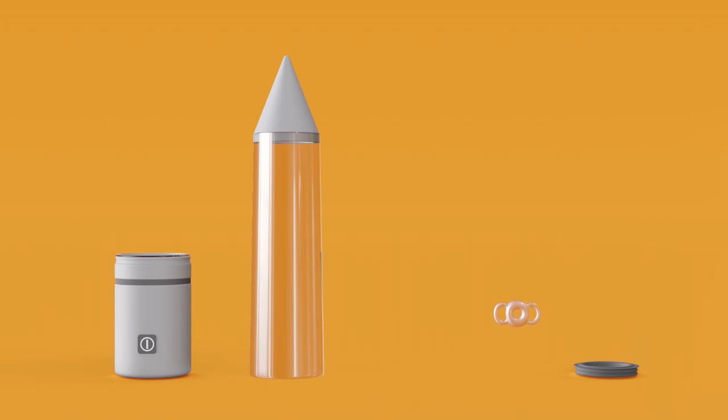Select the largest tension ring. Generously lubricate the loading cone and use both hands to slide the ring down the cone until it lands on the tube.